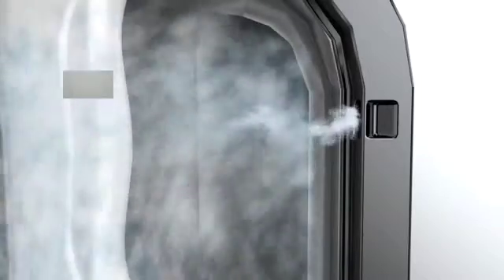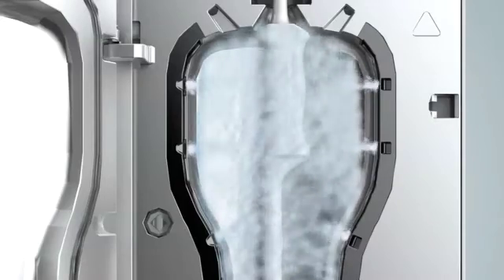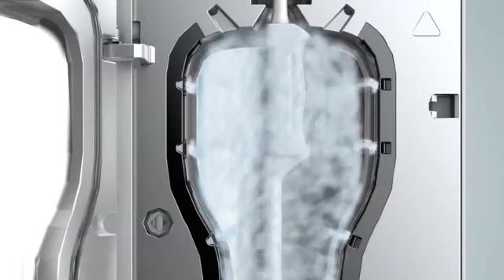The droplets of mist are so small they can get into the crevices and imperfections on the probe surface. And unlike normal aerosols, the mist can rebound from the surface so it remains dry. The entire probe, including the handle, is high-level disinfected.